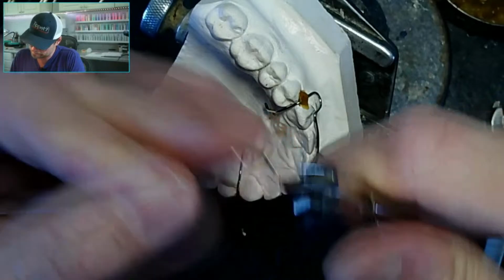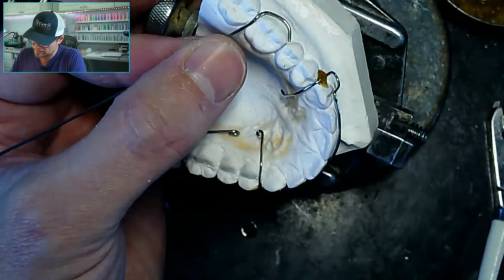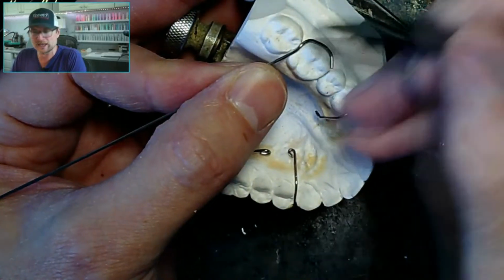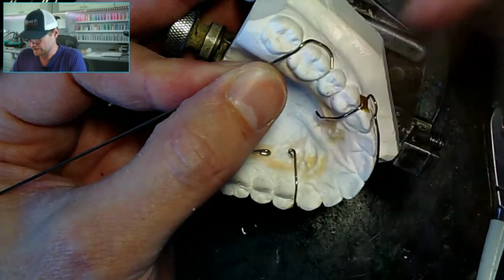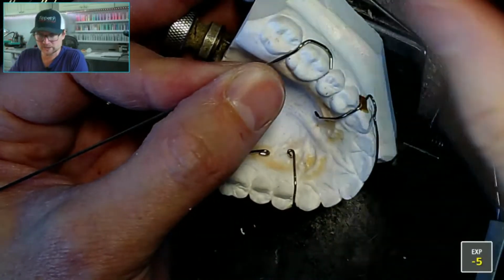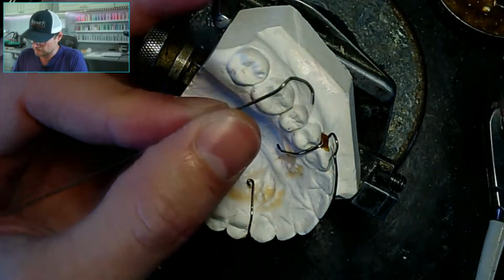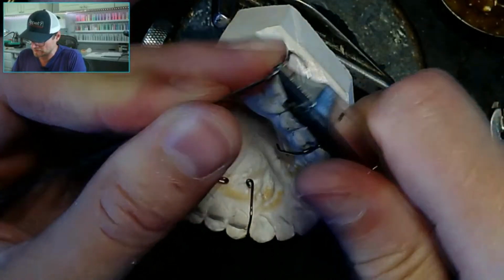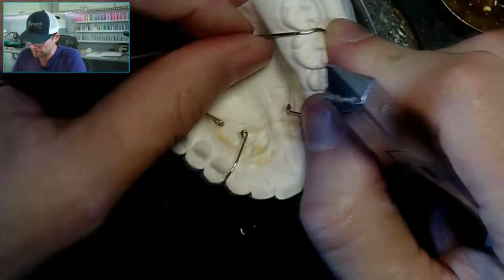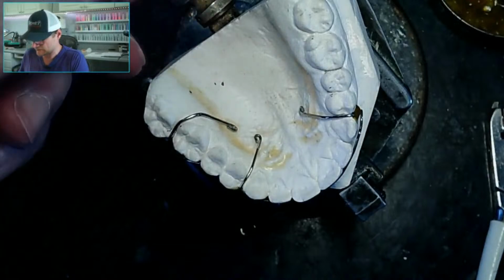Ouch. That didn't really hurt, but the sound did. So you see, I had to put a little jig in here to go back. I feel like this exposure is bad. I'm trying to get y'all the best picture in here so you can see the good, the bad, and the ugly of my wire bending. Again, I am going to cut this.